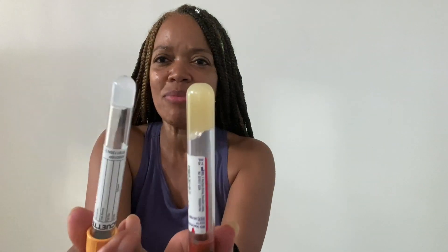That's number one. Number two — this tube is a serum separator tube. Do not let anyone tell you that this tube is different from this tube, because it is not. The top, the hemoguard — yes, that's different — but the tubes, listen, pay attention, are the same because they're serum separator tubes. Both of these tubes have the gel in them that's going to separate the blood from the serum to give us what we need.